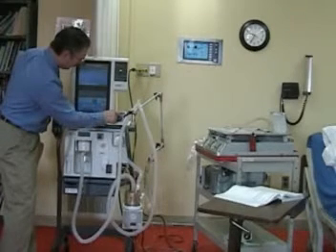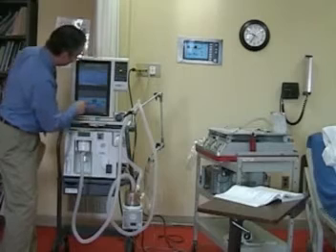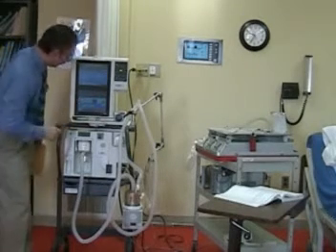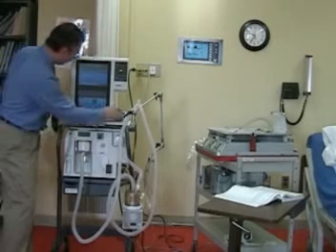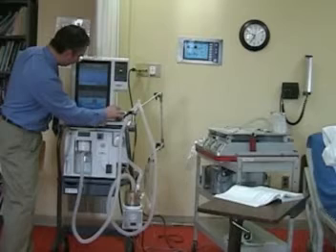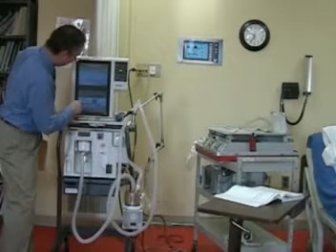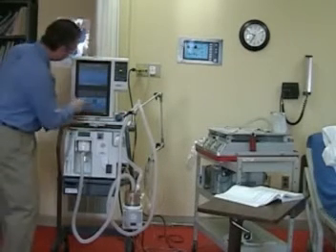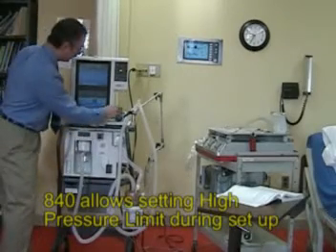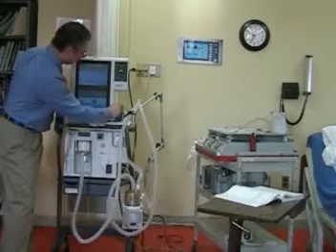We want no PEEP, and we have the rise time, we'll turn that down to 20, and no plateau time. Square wave is fine, and our peak pressure is set at 40. We're happy with that.